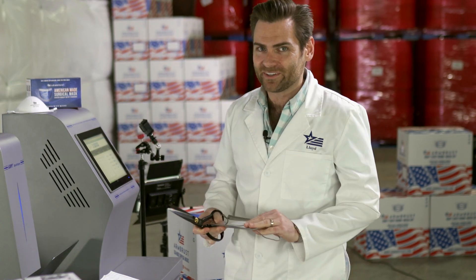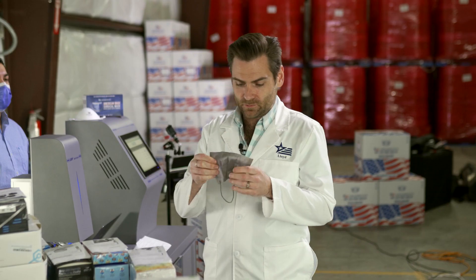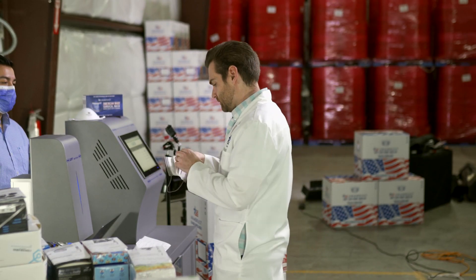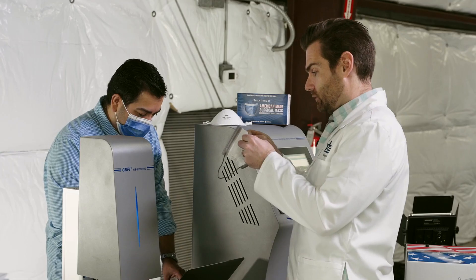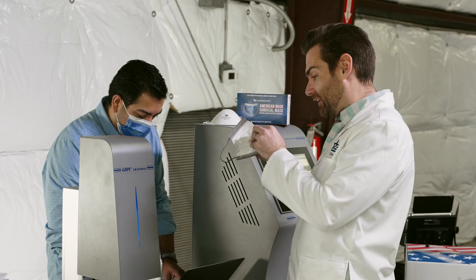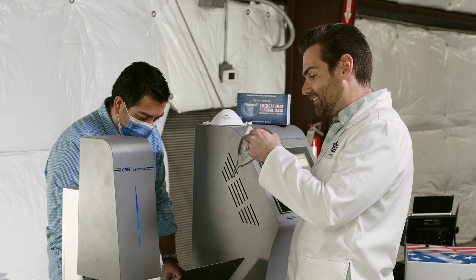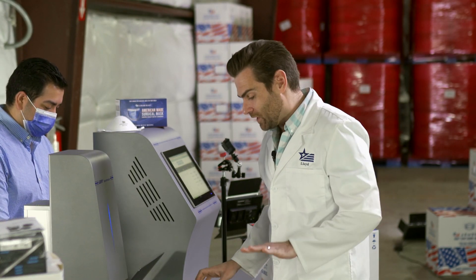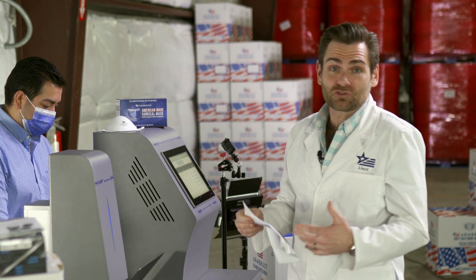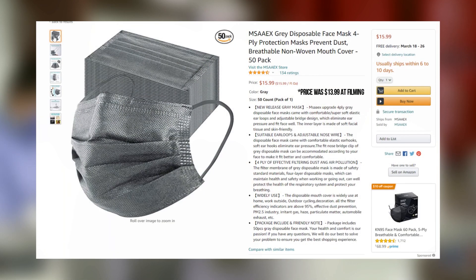I'm going to cut this open because I don't think it's four ply — there would just be no reason for it. Let's open this up and see how many plies we've got. Wait — it is! It's four ply. That is hilarious. There's literally no reason to have two extra layers of spunbond unless you were just trying to make up some reason to sell something extra.